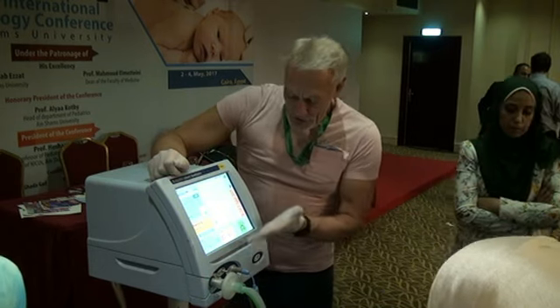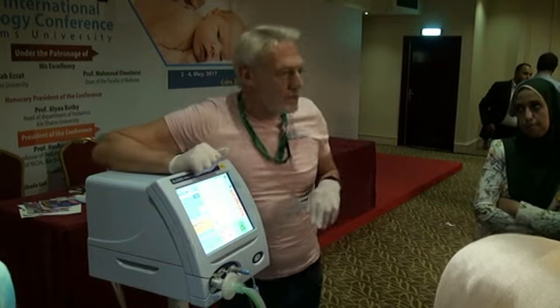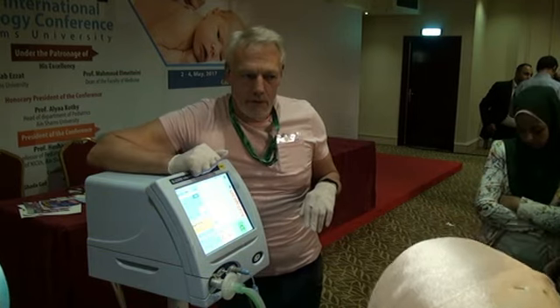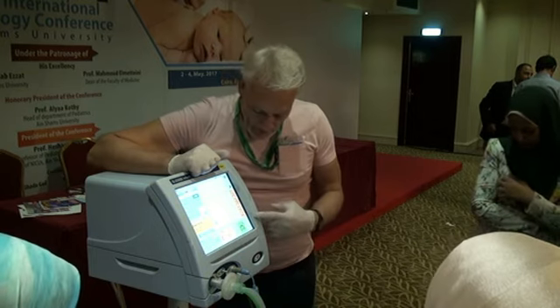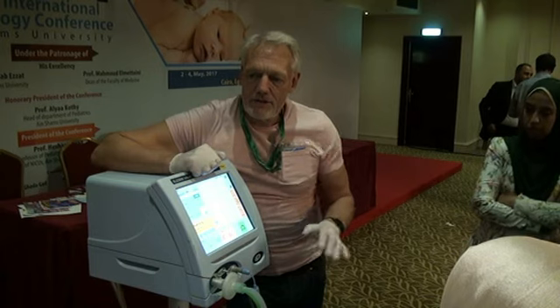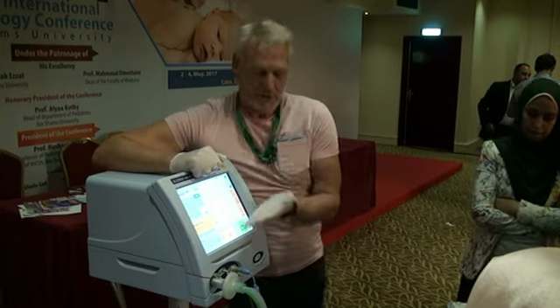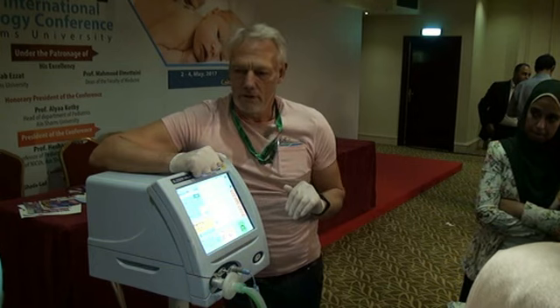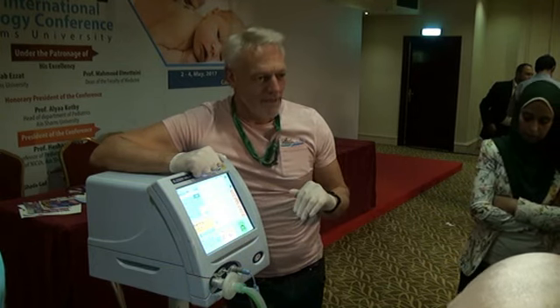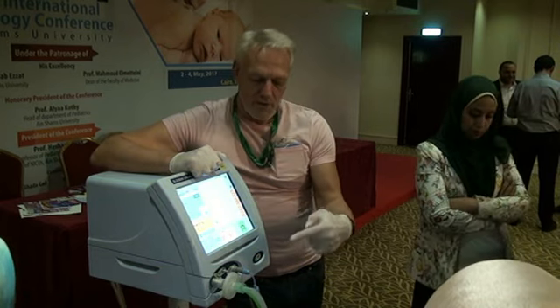So let's just assume that we wanted to oscillate this baby. How do you calculate it? How would you set it up? Let's just assume this is a baby I've decided that I want to oscillate because, for whatever reason, let's not forget my reasons. How are you going to switch from this to that?